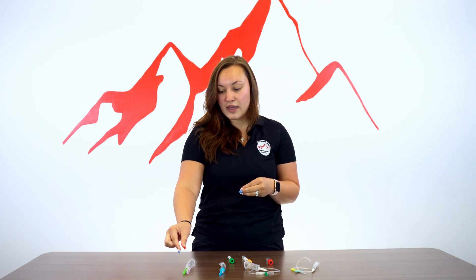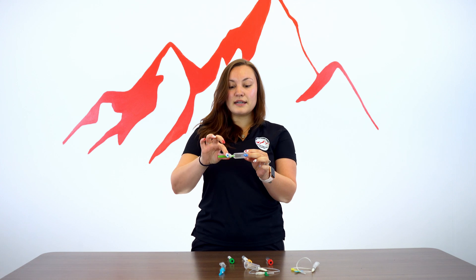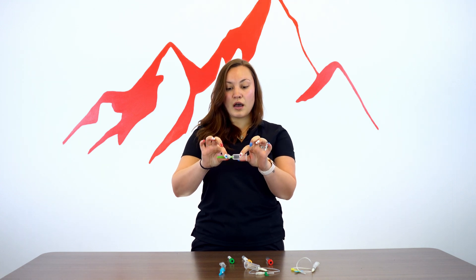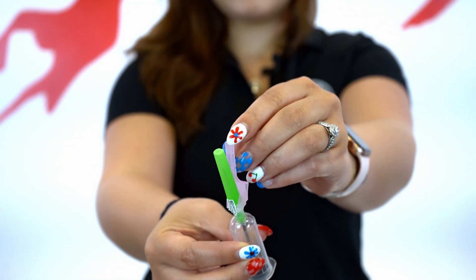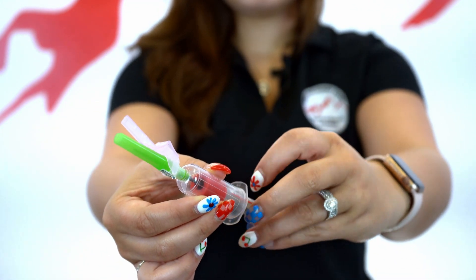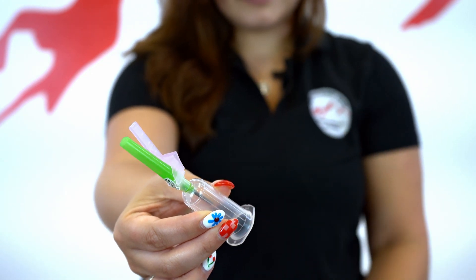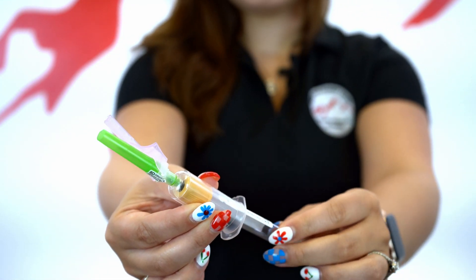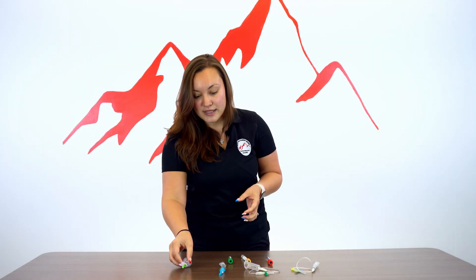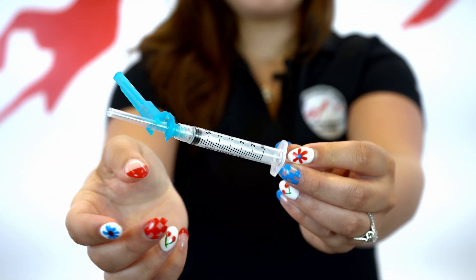Usually we start off with an evacuated tube system. This is a needle attached to a hub, and it allows for multiple tubes to be drawn at once. Once you insert this needle into the patient, you can then just pop tubes on and off in the order of draw.